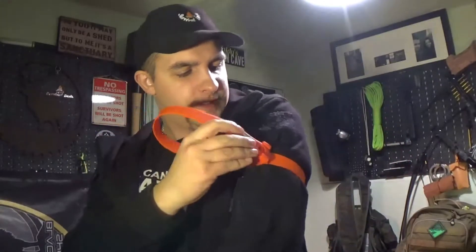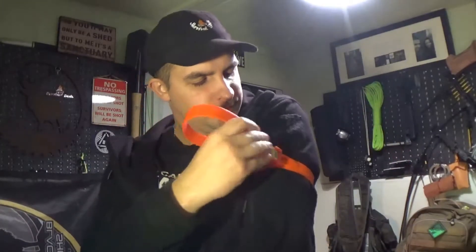Go! Locked in place, press the timer, pushed in. What was that, a couple of seconds?